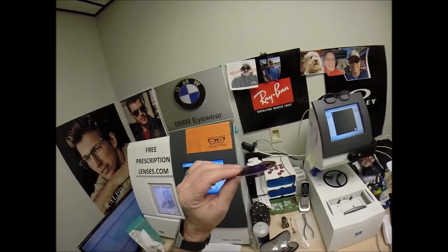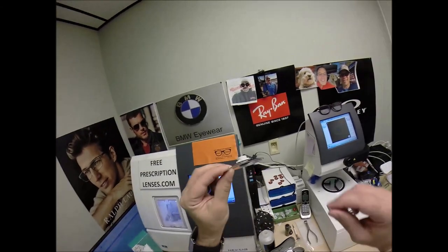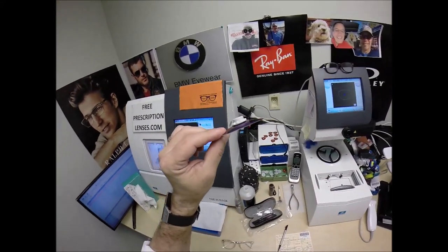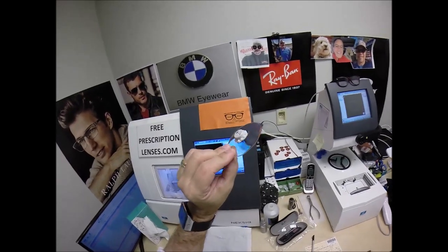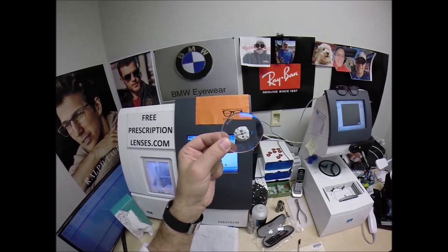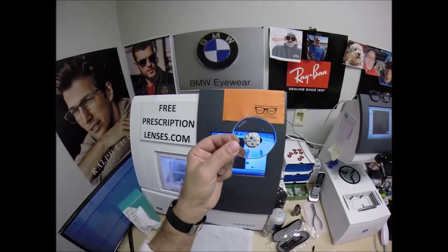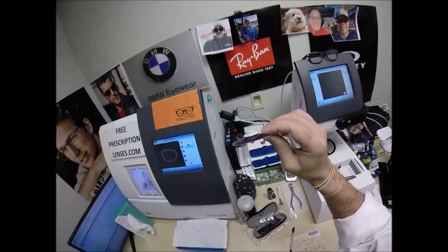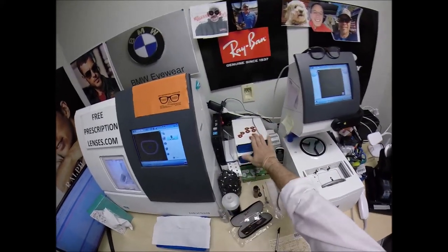Speaking of the cosmetic look, I had your lenses ground specifically as thin as possible. It's known as a knife-edge grind, thin as possible. The abbreviation for knife-edge grind, thin as possible, is KEG TAP. Sounds like something you'd be doing in college — not you, Brian, me. Sounds like something I would be doing in college, except I'm not a non-drinker.